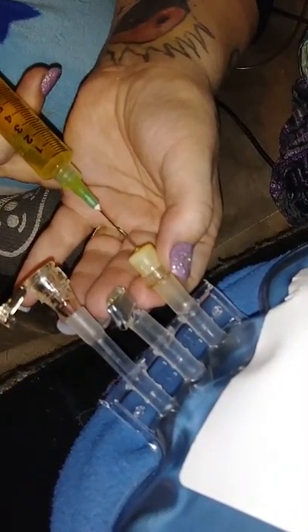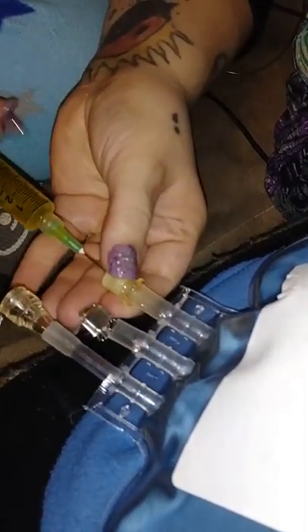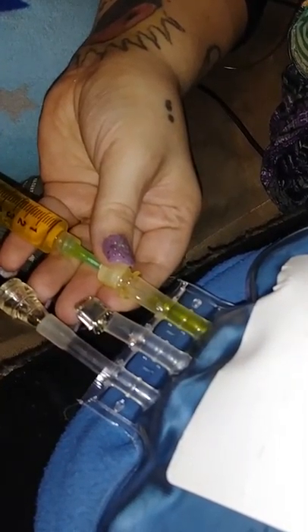So I just need to carefully insert the needle again, and then push it through, which slowly changes the whole color of the bag to — my husband calls it cheap beer. And again, I flush the syringe, put my cap on, and I unscrew this so that when I put it in the sharp it takes up way less space.